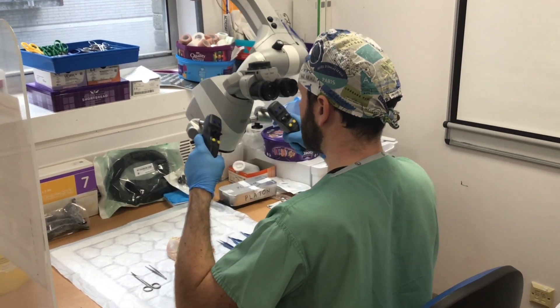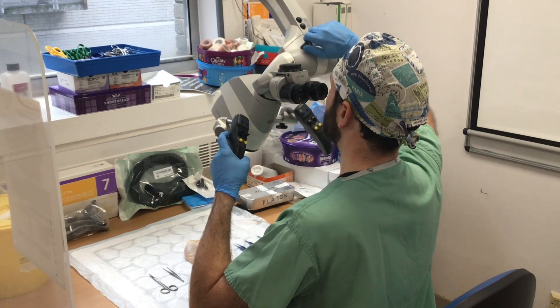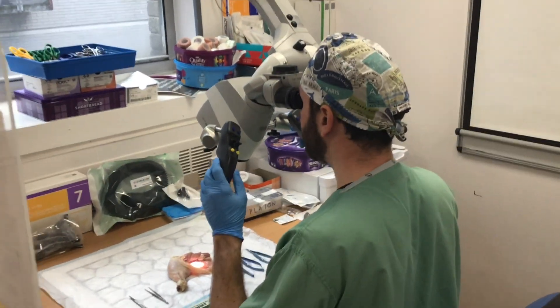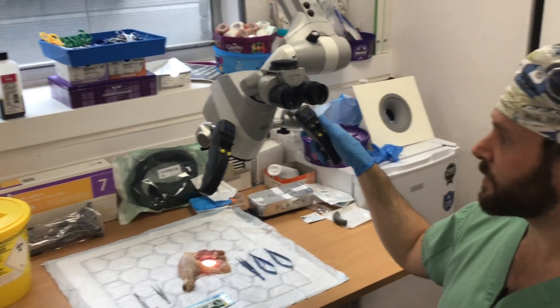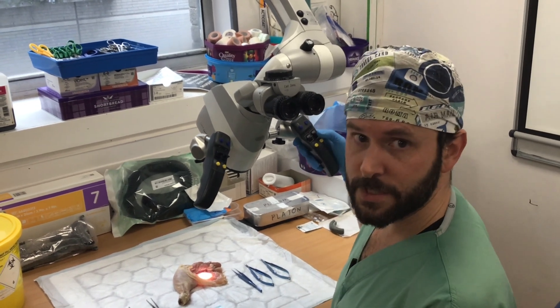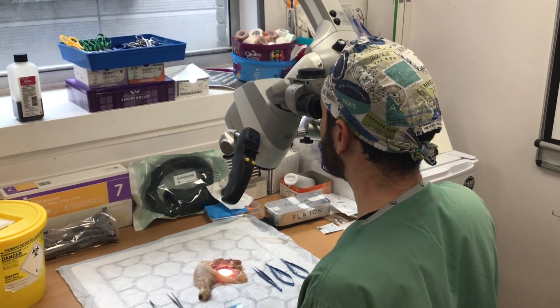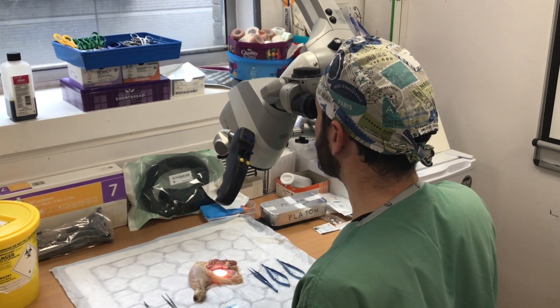You want to be sitting in a nice, comfortable position, a bit like this. The microscope can then be locked in that position. You need to adjust the interpupillary distance to whatever suits you. The controls are just the focus and the zoom. I recommend when you're focusing, you zoom in fully — Z for zoom, F for focus. Zoom in fully, all the way, focus while fully zoomed in, and then pan back.